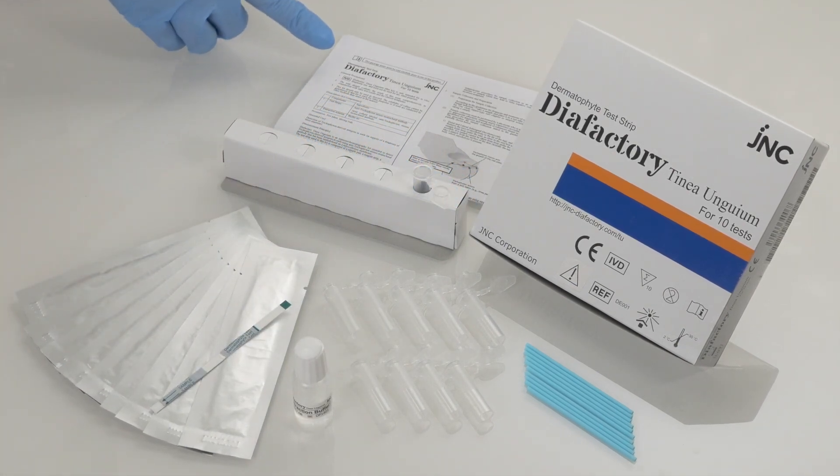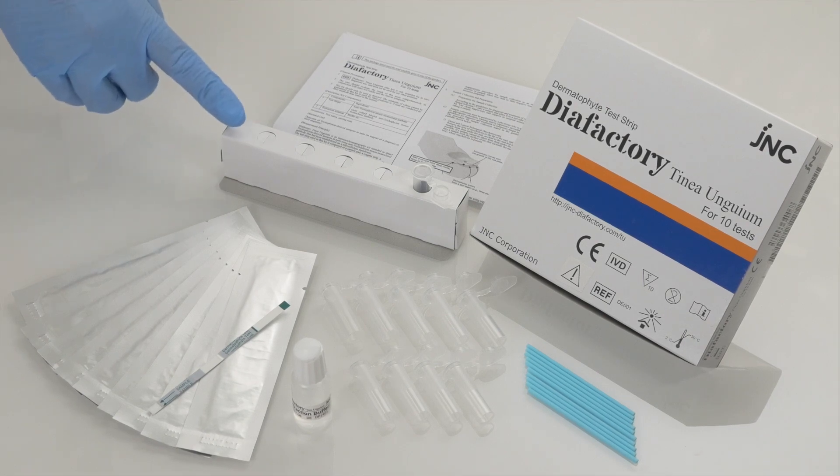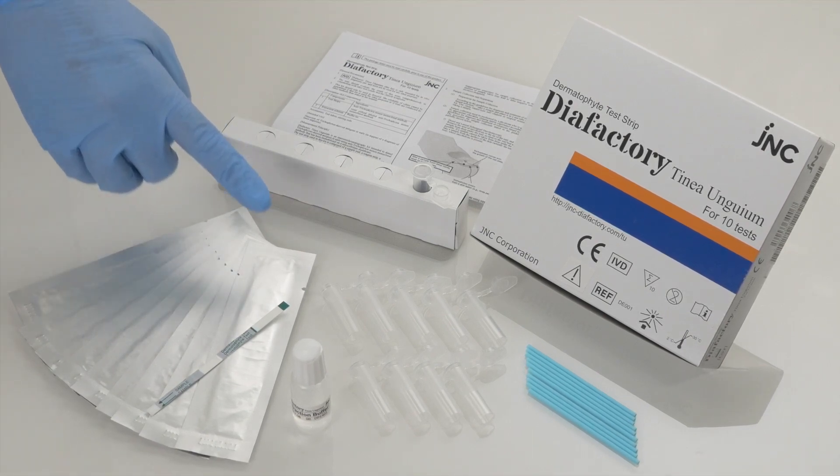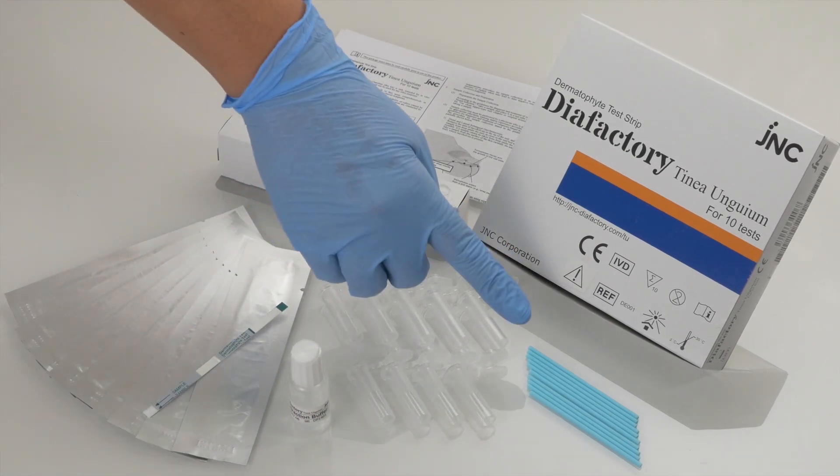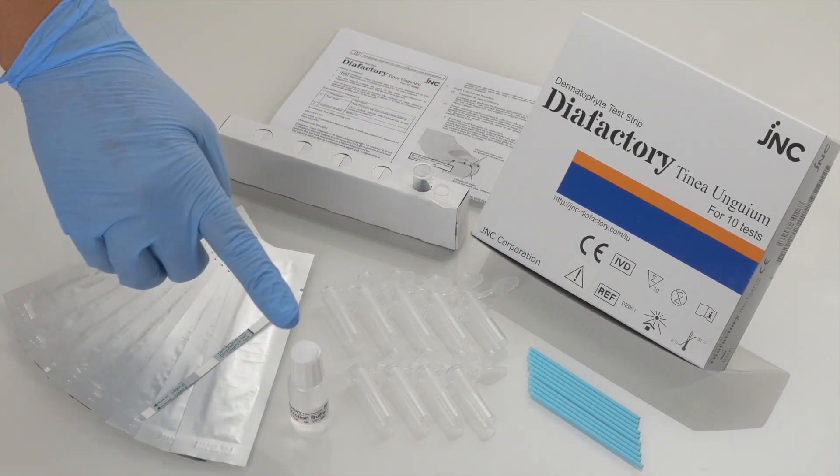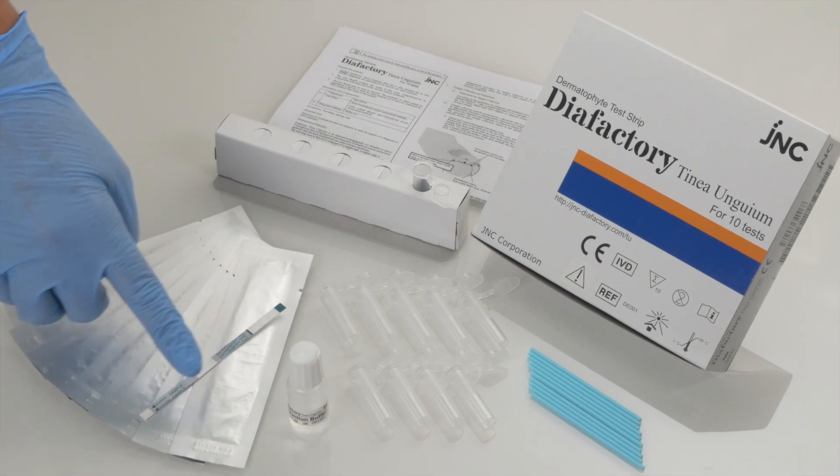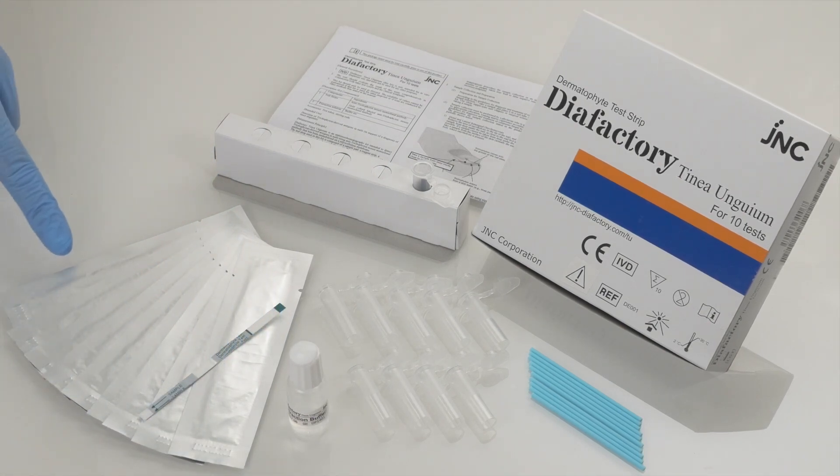The test tube holder, along with 10 disposable plastic test tubes, 10 stirrers, the extraction buffer, and finally your 10 Dermatophyte test strips, each individually foil sealed.